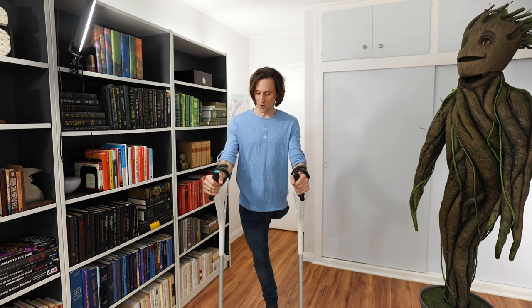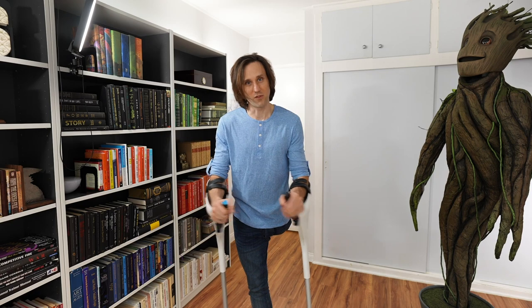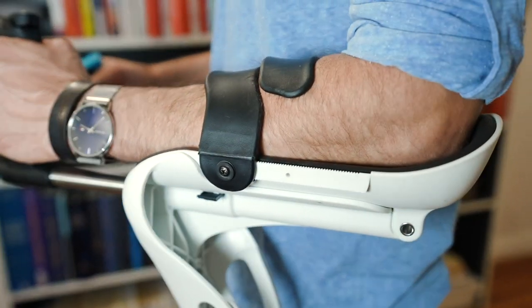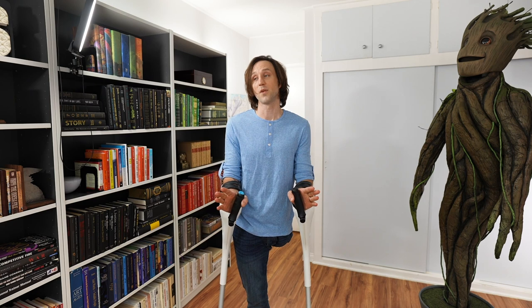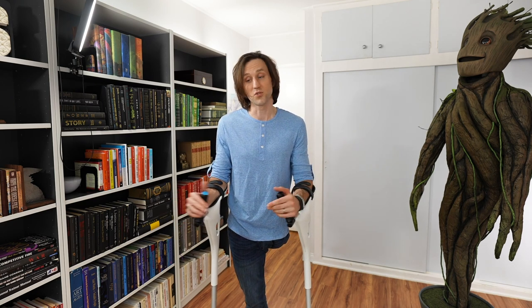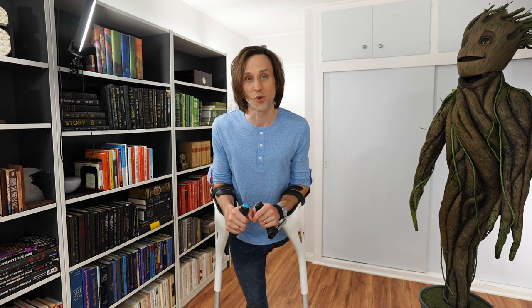On the overall feel, the crutches are so stable. Oftentimes crutches where you're weight-bearing on the forearms are wobbly, but these — you're just locked in. You really feel very stable. And so I think for someone who is only on crutches a short time and crutches are going to feel a little wobbly — maybe you have mobility issues, maybe you're older, maybe you have other joint issues — these are, in my opinion, a remarkably stable crutch.